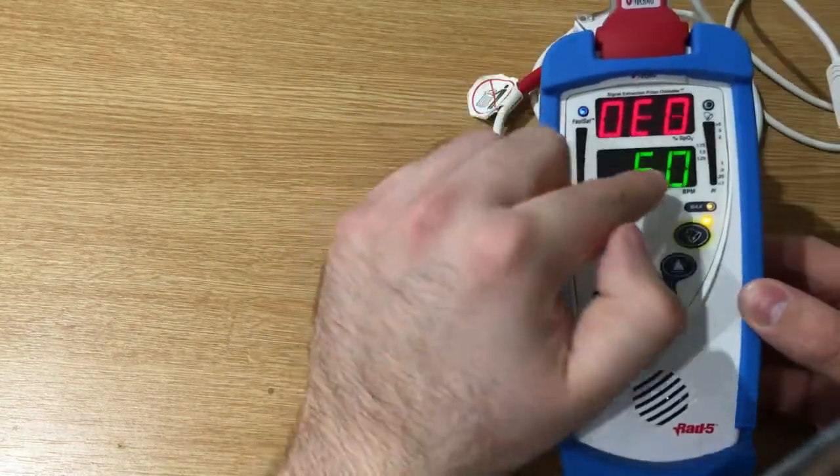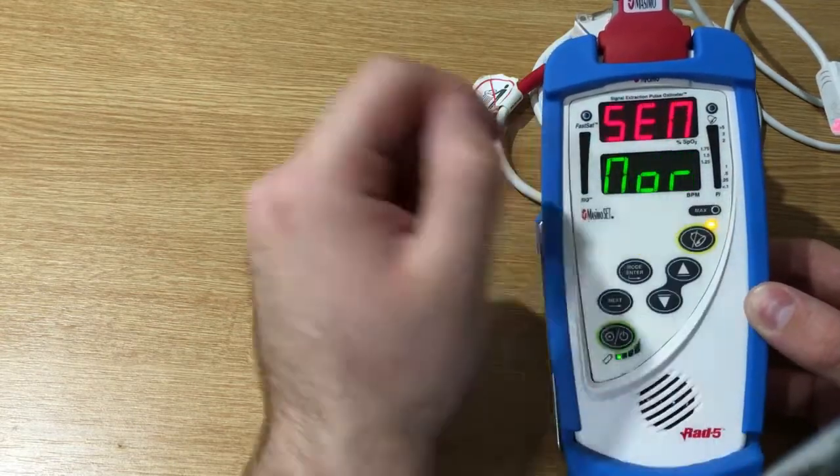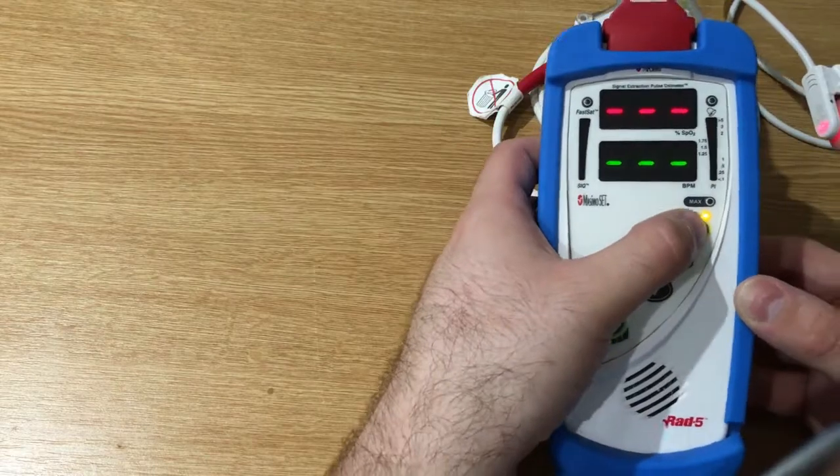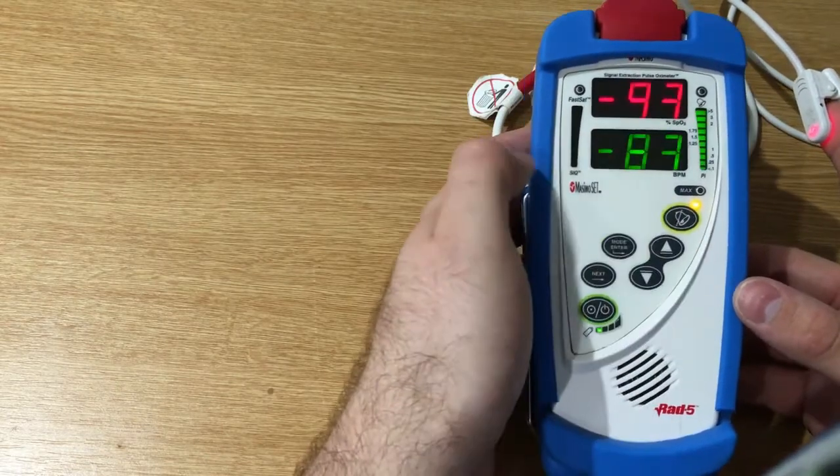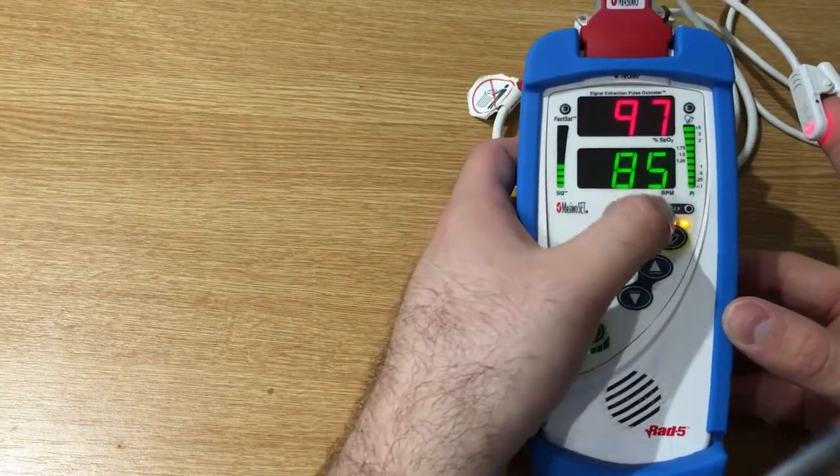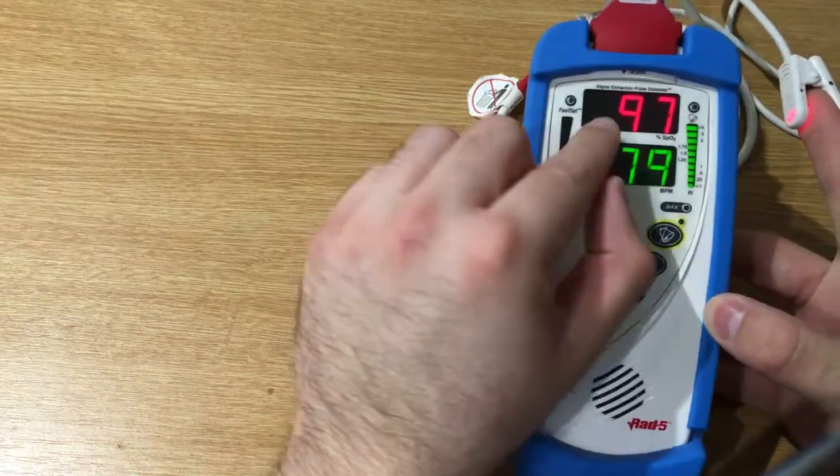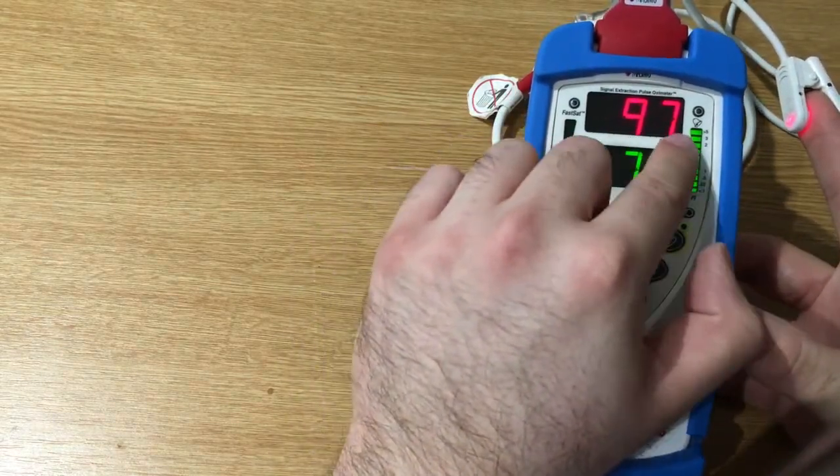So let's turn it on. As you can see, it gives you a summary of the actual settings.